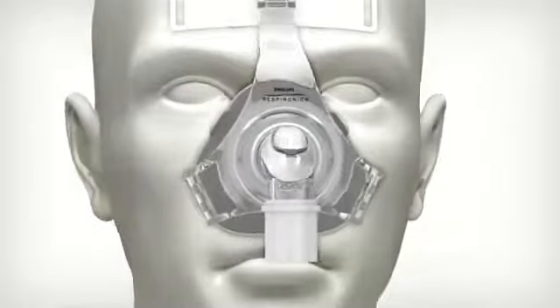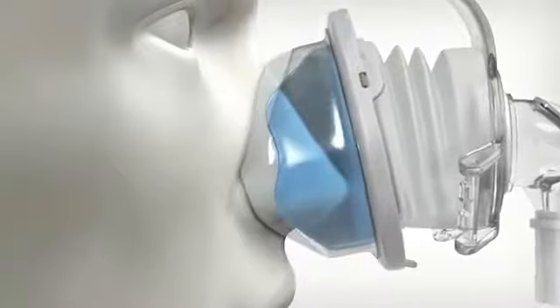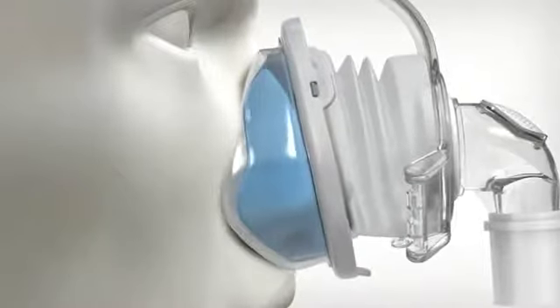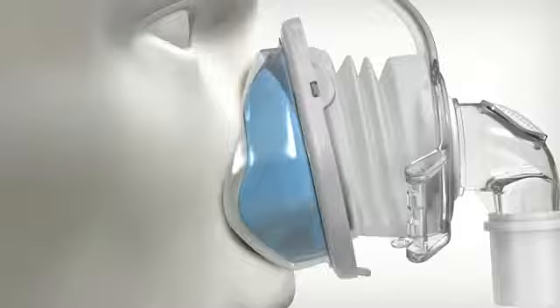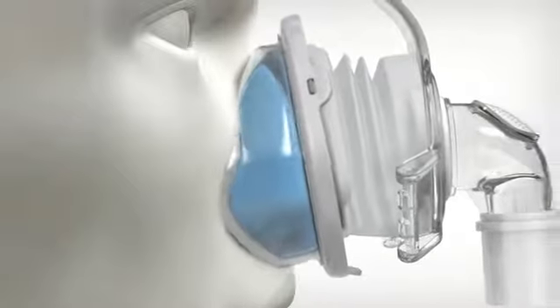Finally, there's Philips Respironics Premium Blue Gel, which works together with the soft, thin, form-fitting outer silicone membrane to create a self-adjusting seal. The blue gel provides extra stability and is thinner and lighter than ever before.